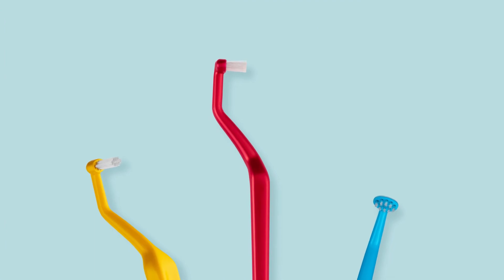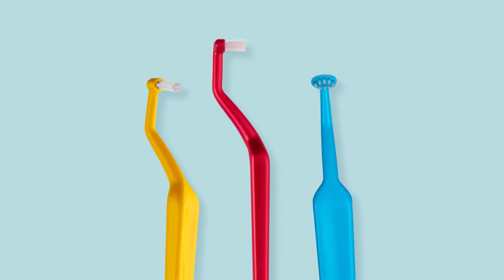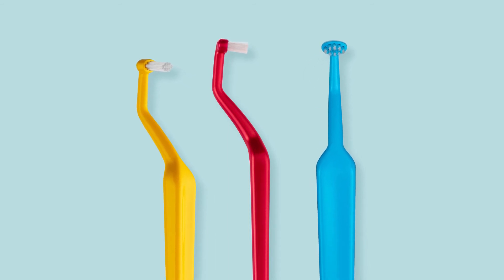The angle of the neck of the brush can be adjusted in hot water. Like the name Universal suggests, there are many different areas of your mouth where this brush can be used. This toothbrush should be used daily to disrupt the bacteria in those hard-to-reach areas.